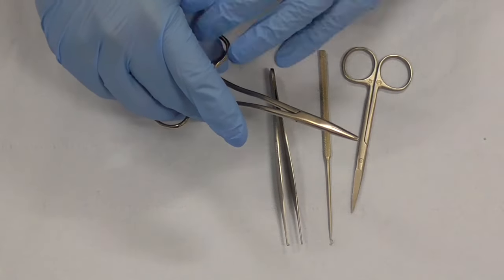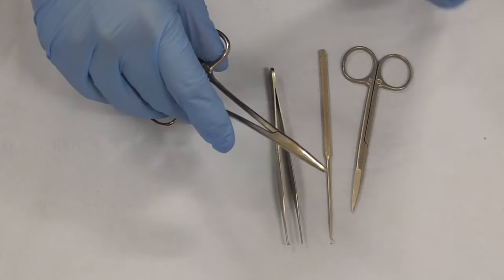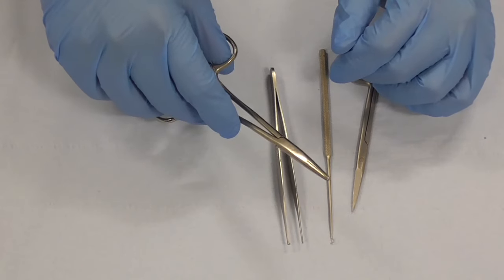So that's your ratchet needle holders. There are some needle holders without ratchet but we won't complicate matters with that just at the present time.